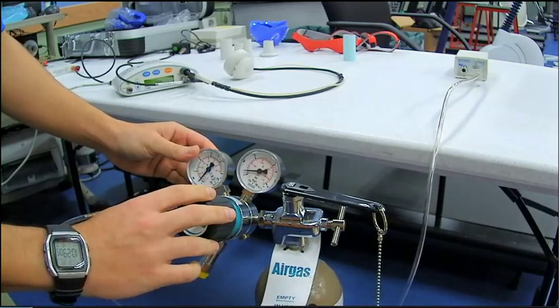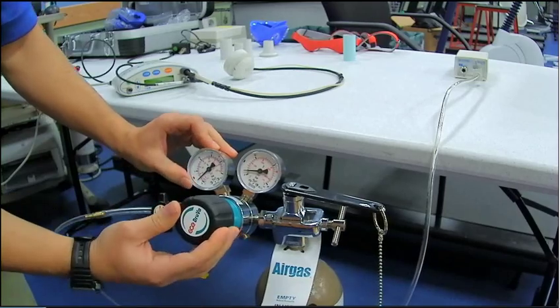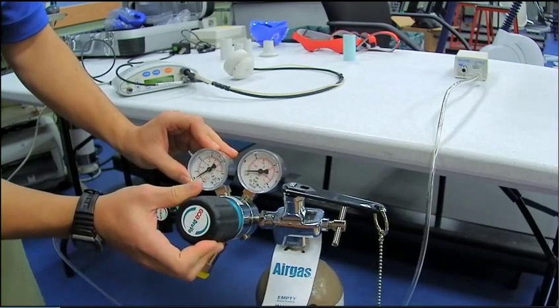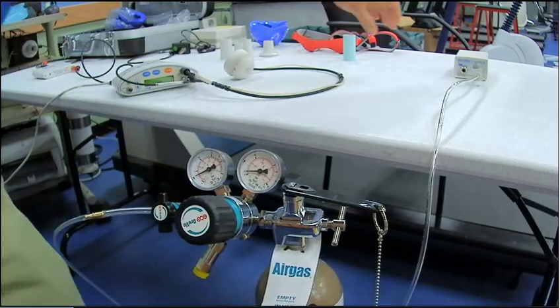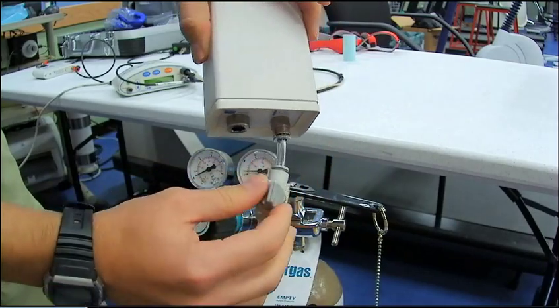Now you're going to come over here, and you're going to twist this knob until you get to your desired three to five range of pressure. And once you're there, I'm going to come back over to the calibration box, and you're going to close this line.